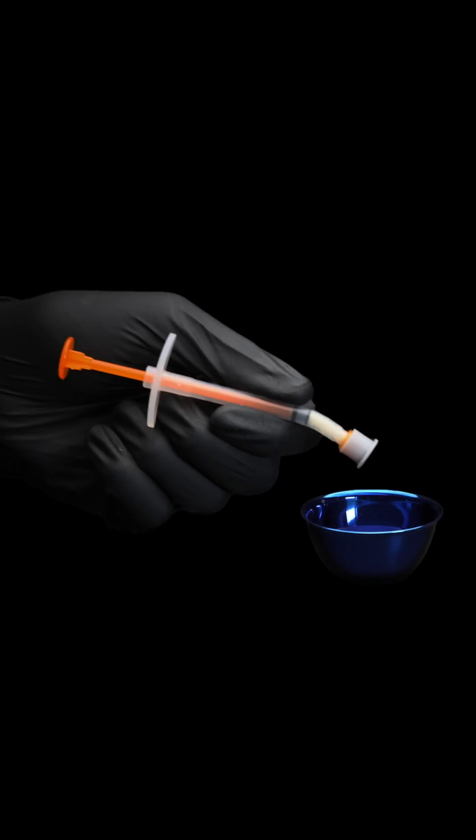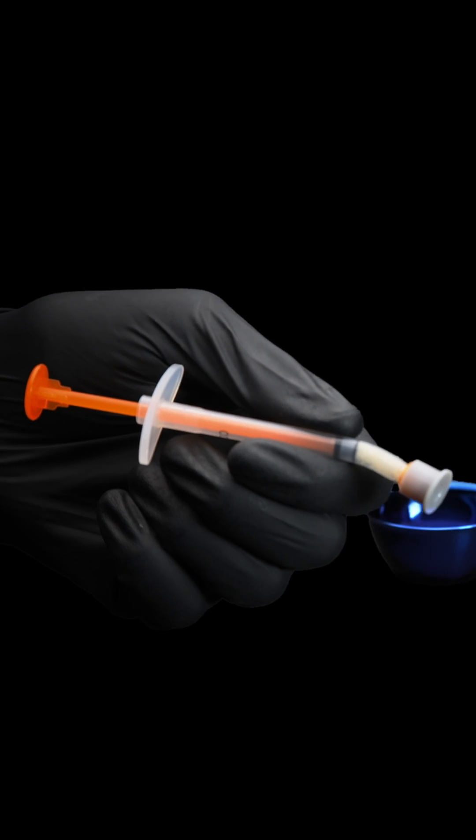The TBS Allograft Bone in a syringe features a unique curved syringe that allows for easy hydration and easy application. Here is how you use the syringe.